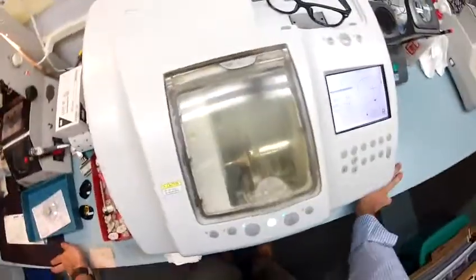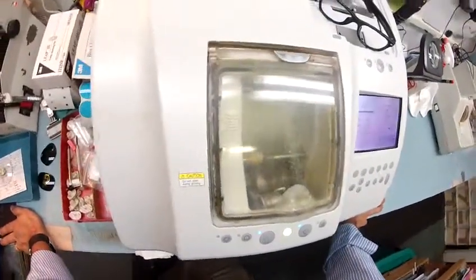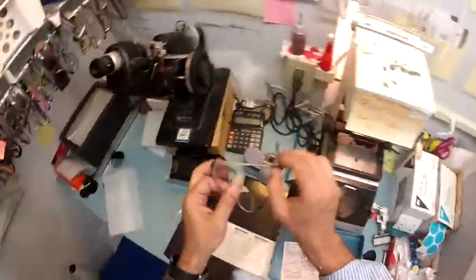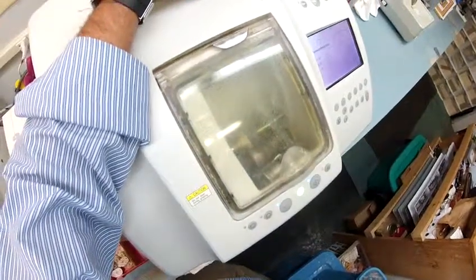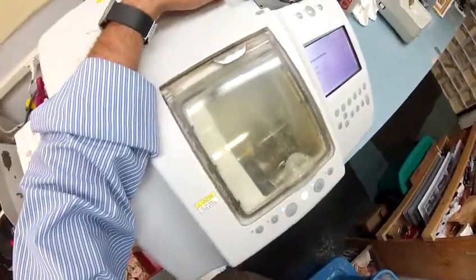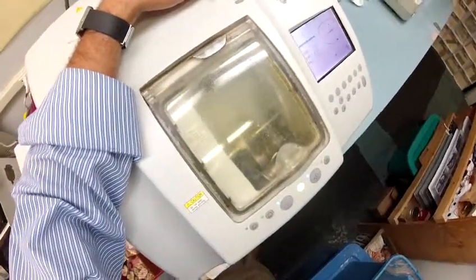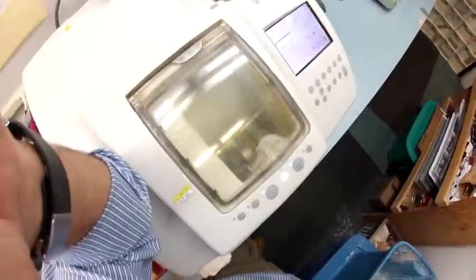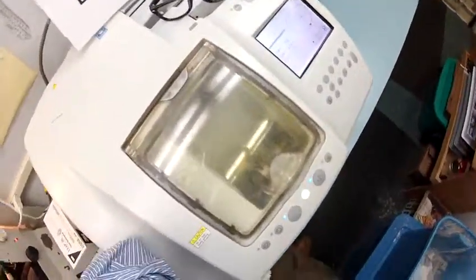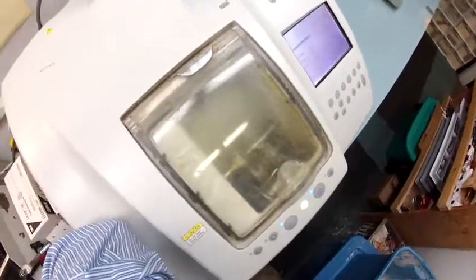Your lenses will have ultraviolet A and UVB protection. We know what the sun's harmful ultraviolet rays can do to your skin from overexposure — your eyes are eight times more sensitive than your skin. So you have permanent sunscreen for your eyes whenever you're wearing these. Of course they are going to be clear at the top with a 1.75 reading at the bottom. Plus Bob, a few years from now should you ever need a different prescription, I can send them right to your home, and after watching this video you'll be able to pop your lenses in and out just like I do.